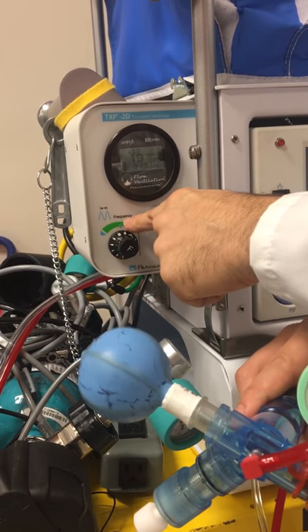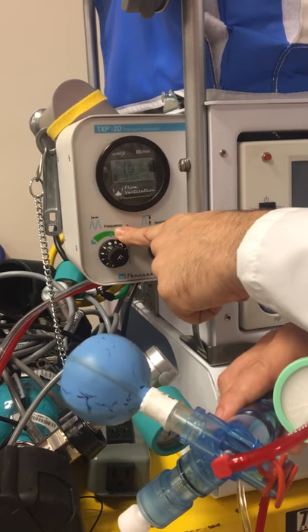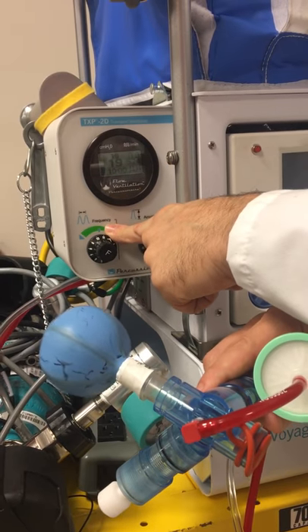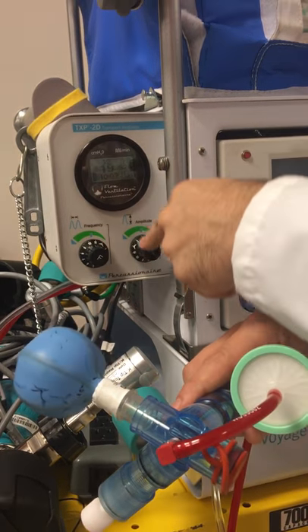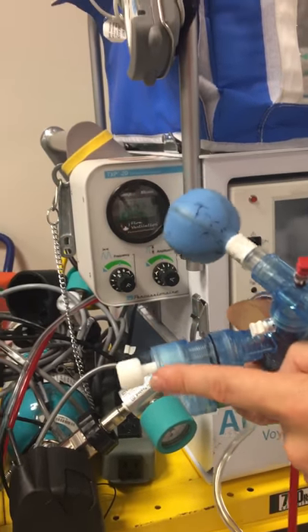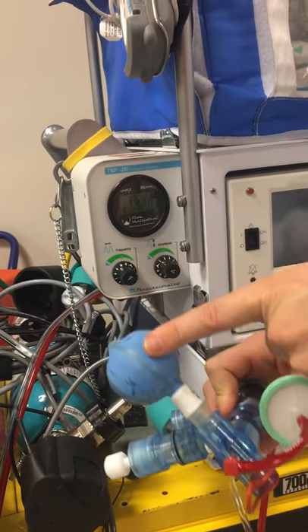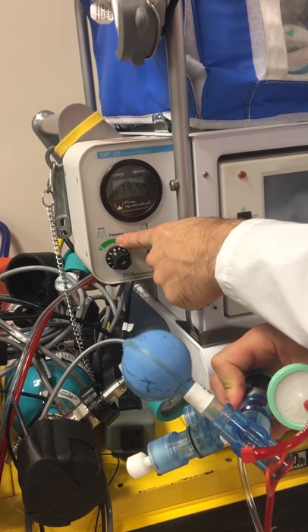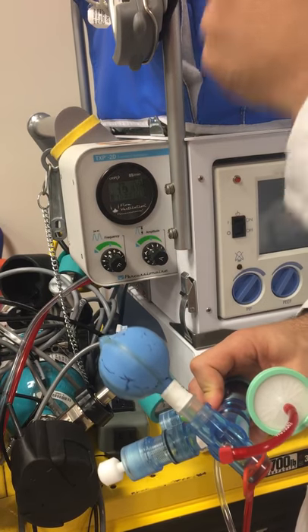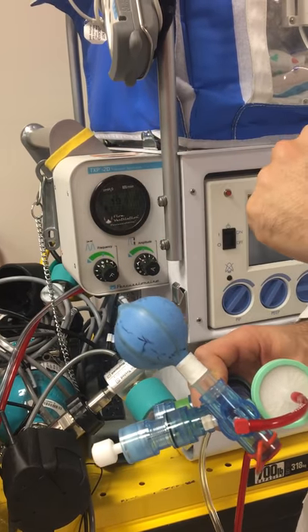We adjust the frequency towards our goal while maintaining sats, maintaining proper end-tidal CO2, and taking ABGs to make sure the patient is stable for travel. So chest wiggle, frequency, and mean airway pressure PEEP valve — those are the three knobs we're going to affect. We match the mean airway pressure for the patient, get proper chest wiggle with the amplitude, and adjust frequency towards our goal: increased frequency for oxygenation, decreased frequency for CO2 removal, or around 450 to 500 towards the middle.